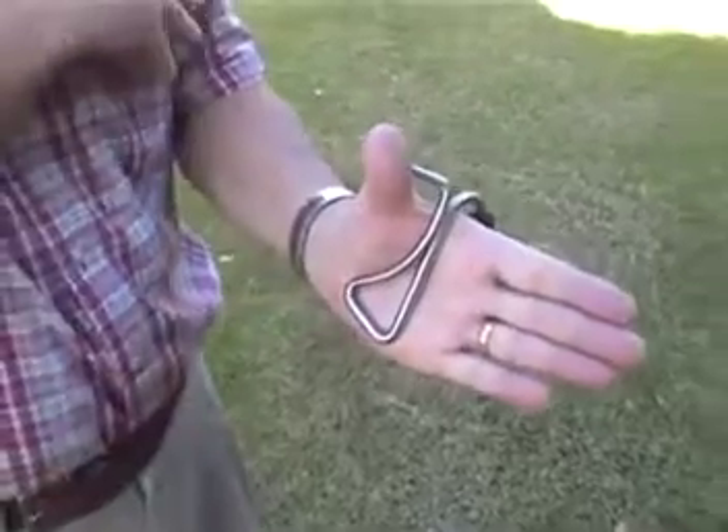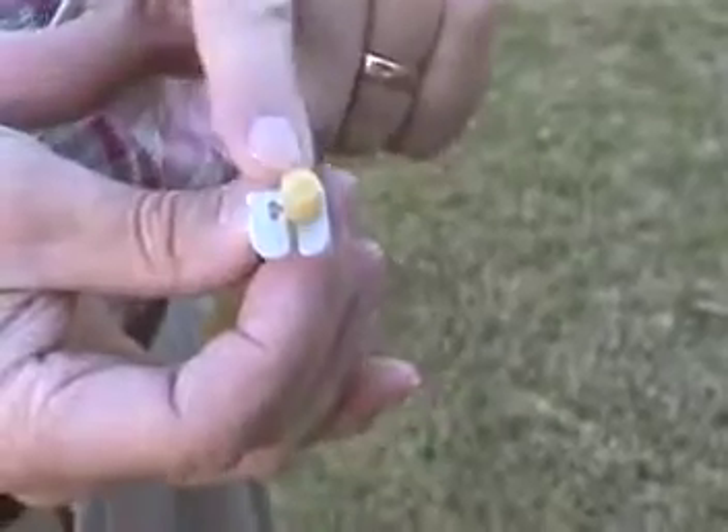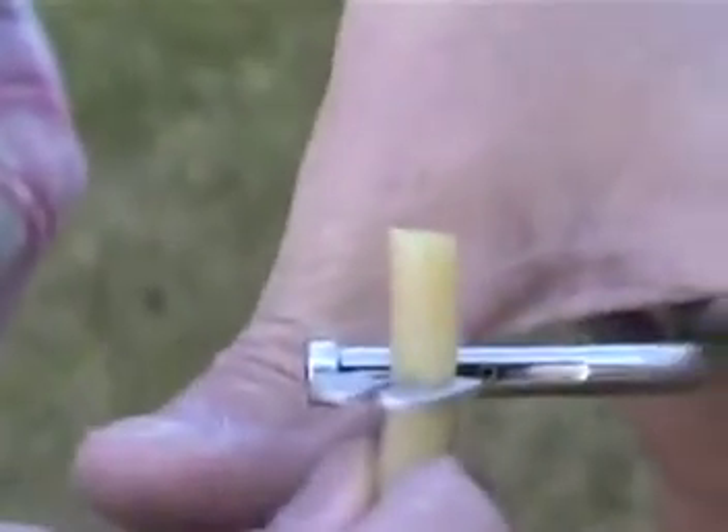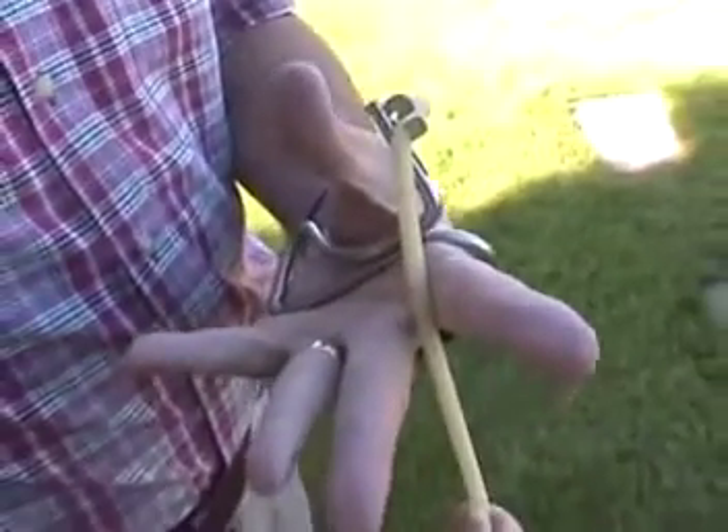With the open hand, you're ready to load a clip. You take the band. The clip on the band has a notch on one side. That notch fits under the ring and the clip drops down into the slot on the tool. The other end of the band, stretch it slightly and hold it between the first two fingers of the hand.